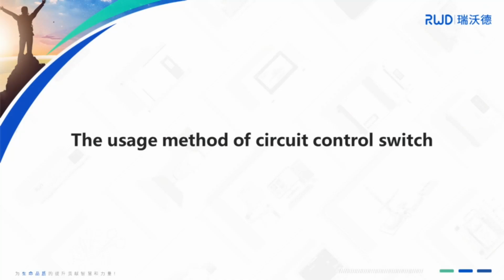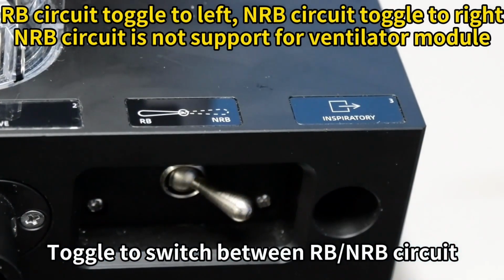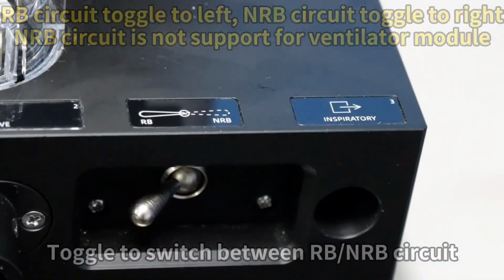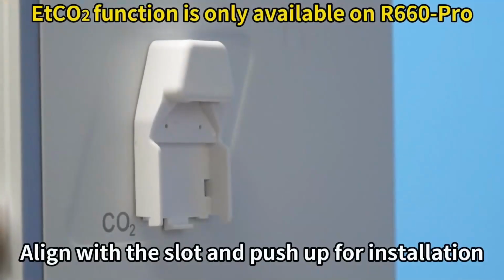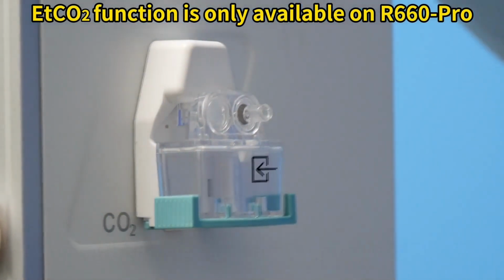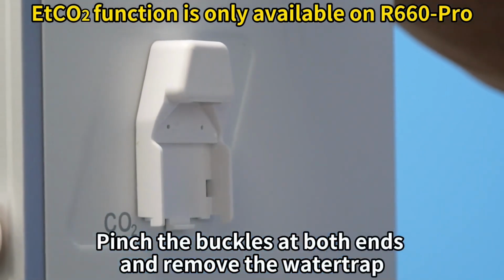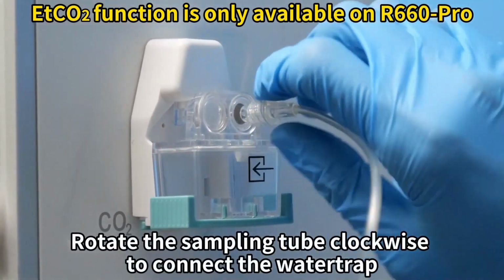The usage method of circuit control switch. Toggle to switch between RB and non-RB circuit. The usage method of end-tidal carbon dioxide water trap. Align with the slot and push up for installation. Pinch the buckles at both ends and remove the water trap. Rotate the sampling tube clockwise to connect the water trap.